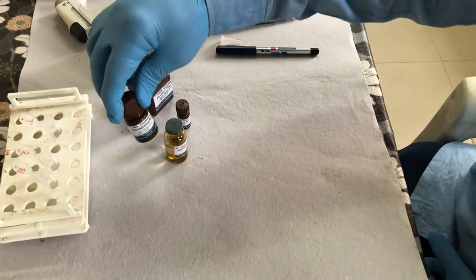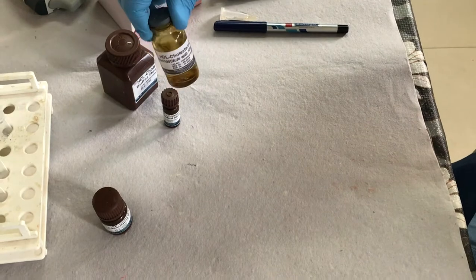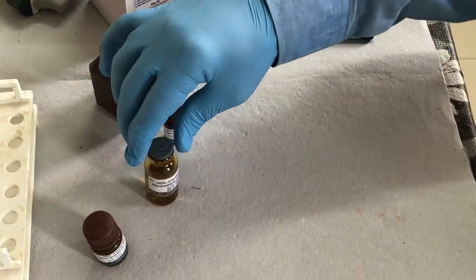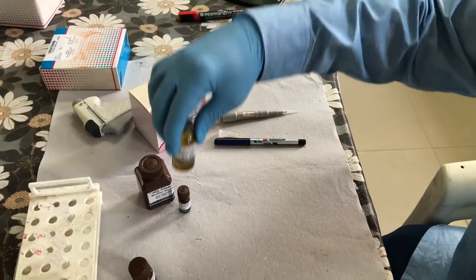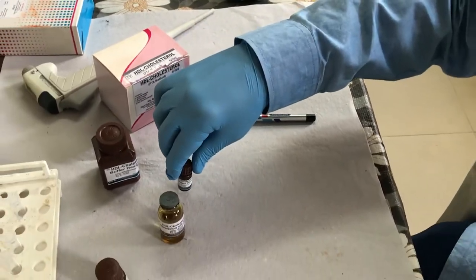Let us talk about HDL, high density lipoprotein estimation. HDL will be estimated from the serum sample by an enzymatic method. We have an HDL cholesterol buffer, an HDL cholesterol precipitating reagent, and an HDL cholesterol enzyme reagent. It contains the enzymes cholesterol esterase as well as cholesterol oxidase. It comes in powder form and is reconstituted with 10 ml of buffer reagent. The HDL cholesterol standard supplied is 50 mg per deciliter.